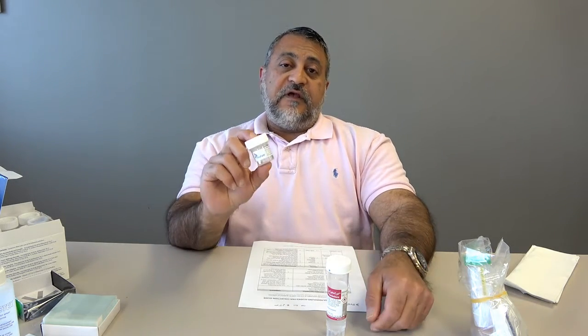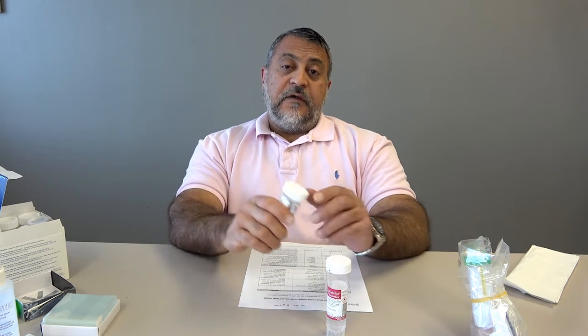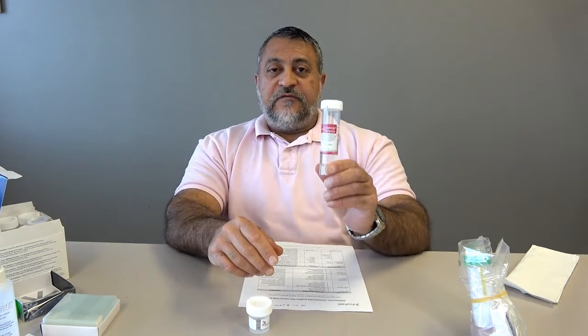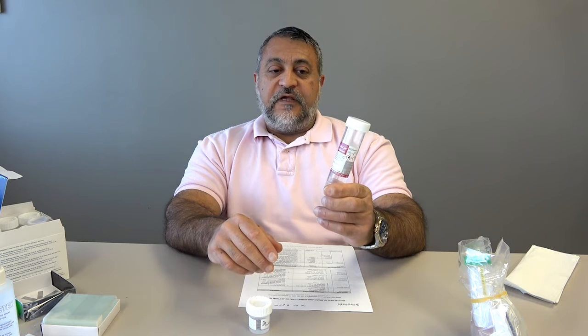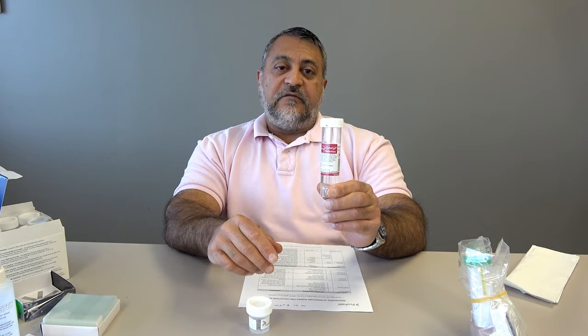And if you have to err, err on the side of submitting everything in here. And so I would recommend 3 solid passes if you can. I mean, of course, if you don't have that much material, you can't do that. But if you can, I would put as much as you can in here because this is going to give you a lot of diagnostic horsepower. Now, worst case scenario, it's not a big deal because if you just have the cytolite thin prep specimen, we can also use this to make a cell block. So either one of these really and you're golden.